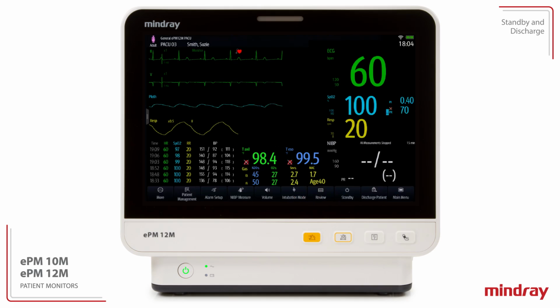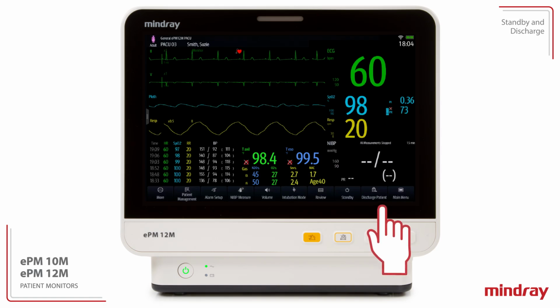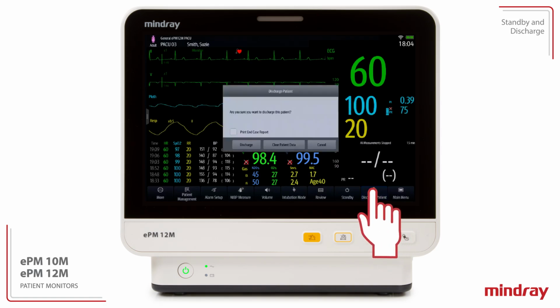When a patient is removed from the monitor and monitoring is no longer required for the patient, the patient information should be cleared. Discharge clears the monitor of the active patient data, as it places the patient data in the discharged patient list. Discharge also restores the departmental default settings to the monitor. To discharge a patient, select the Discharge Patient Quick key.